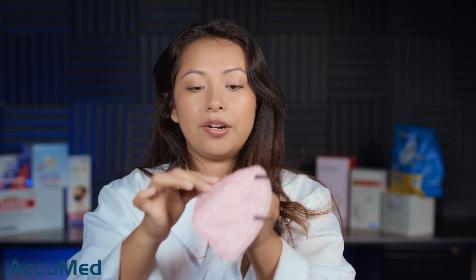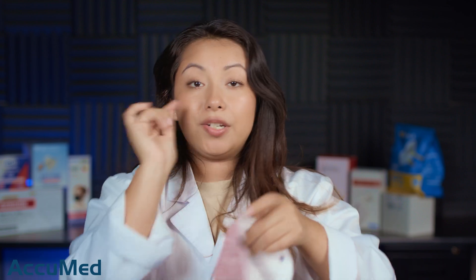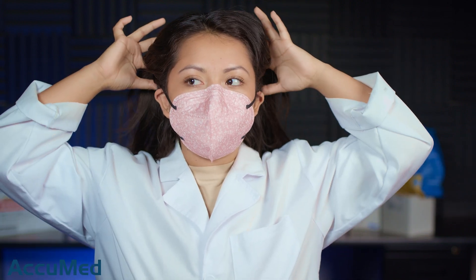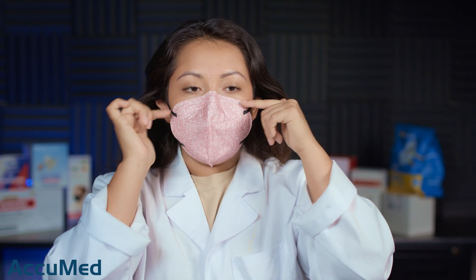These are a bifold mask. I'm going to flatten out the nose wire in order to adjust it correctly to my nose. As I'm playing with it, it does have a lot of fuzz fraying out. These ear loops are a little tight — they are making my ears go to the front a little bit, but it's nothing too crazy. I don't feel like they're going to be the most comfortable to wear for a long period of time. As I'm doing a seal check, I do feel a lot of leakage on the bottom portion of the mask, although I was able to get a good seal even though the nose wire is a little flimsy.